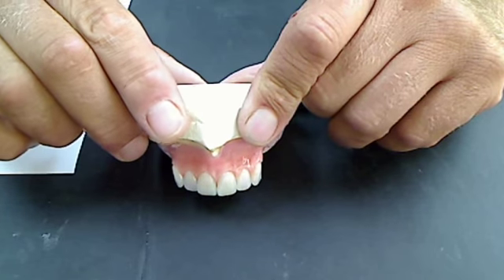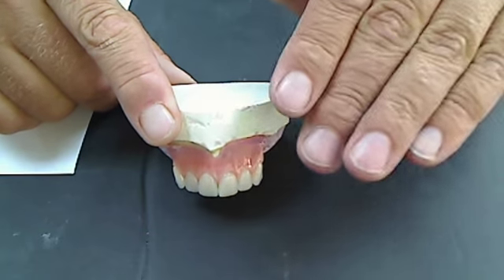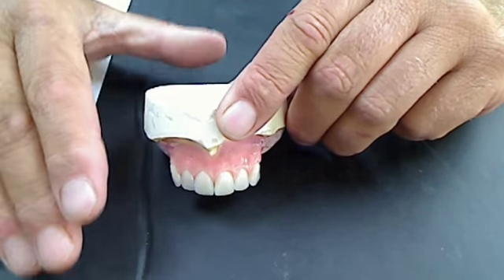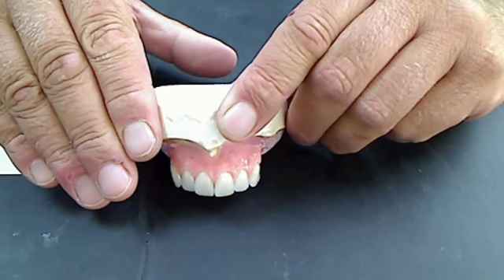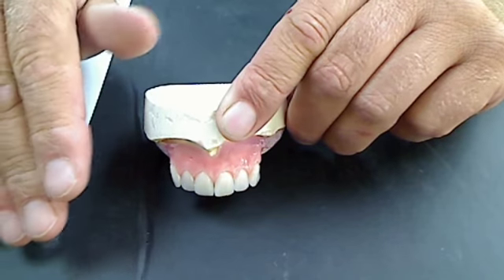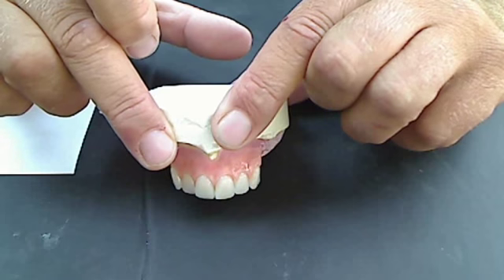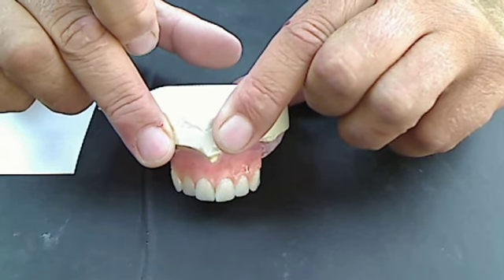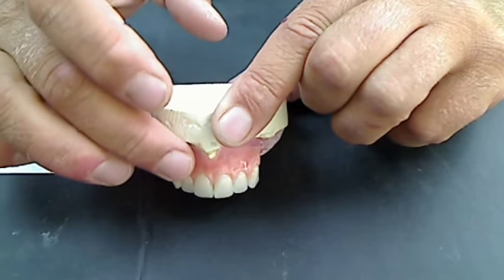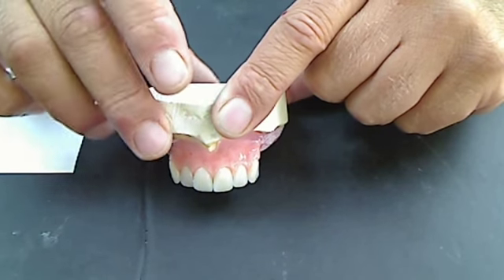You also have to remember that all of this relates to emergence profile — the way the tooth exits the tissue. If you really want to be a critical judge of denture setups and contouring, look to see that it mimics emergence rather than just laying on top of the tissue. You want to project the image that it is emerging, leaving the tissue. Tooth angulation will affect where in the tissue area relates to fullness of form, mesial-distal prominence, and cervical prominence. Laterals show the most variation in tooth form, and if they show variation in tooth form, they'll also show variation in root form — keep that in mind when contouring.